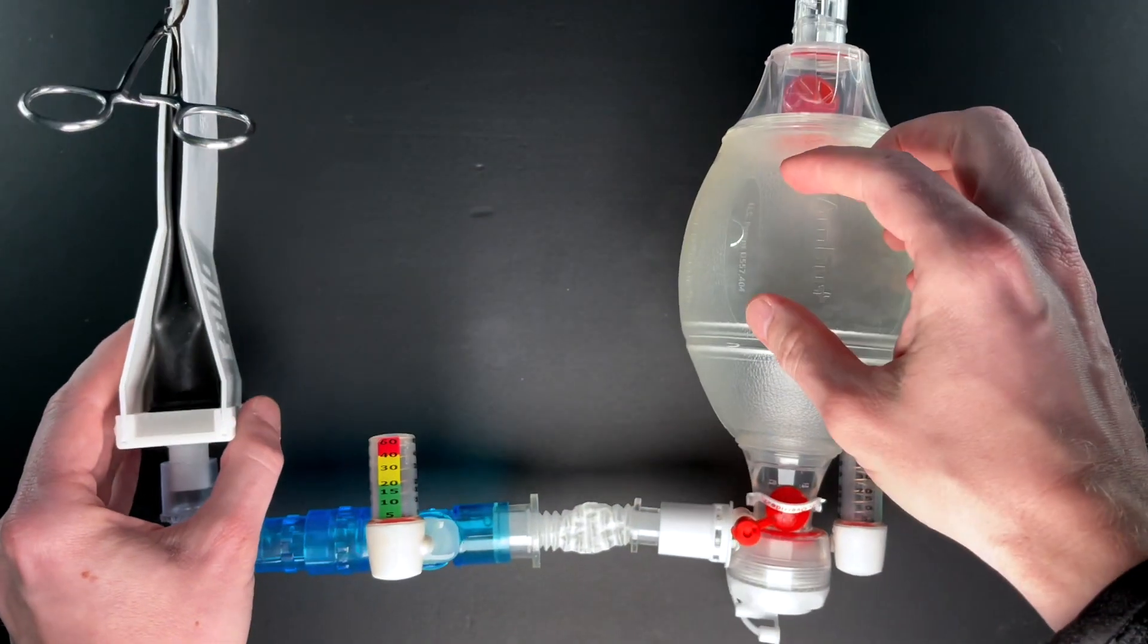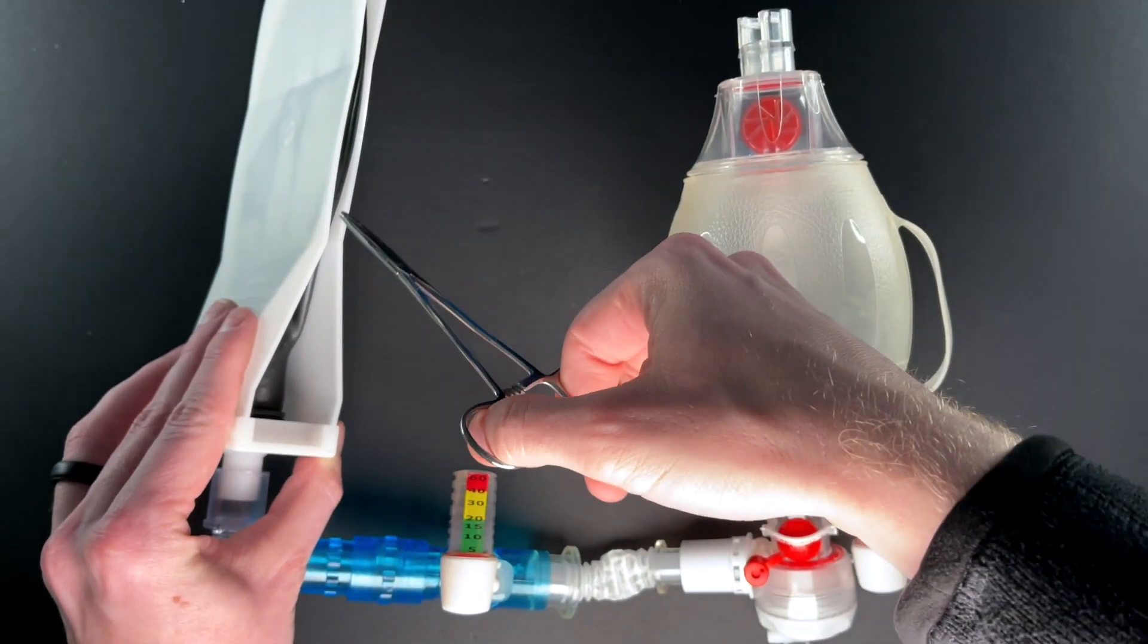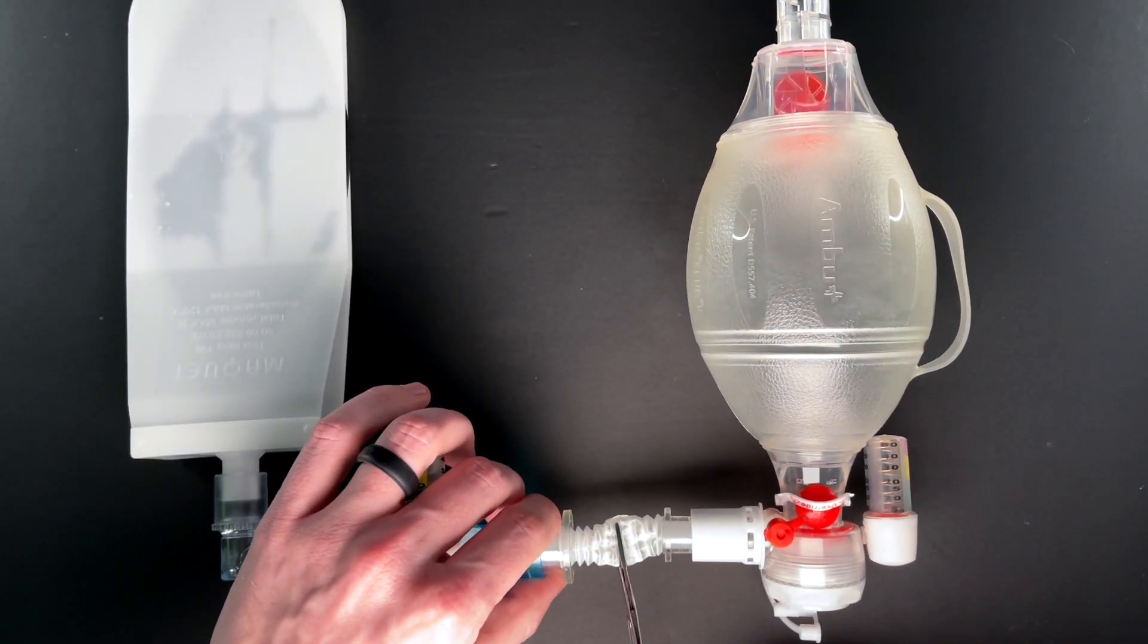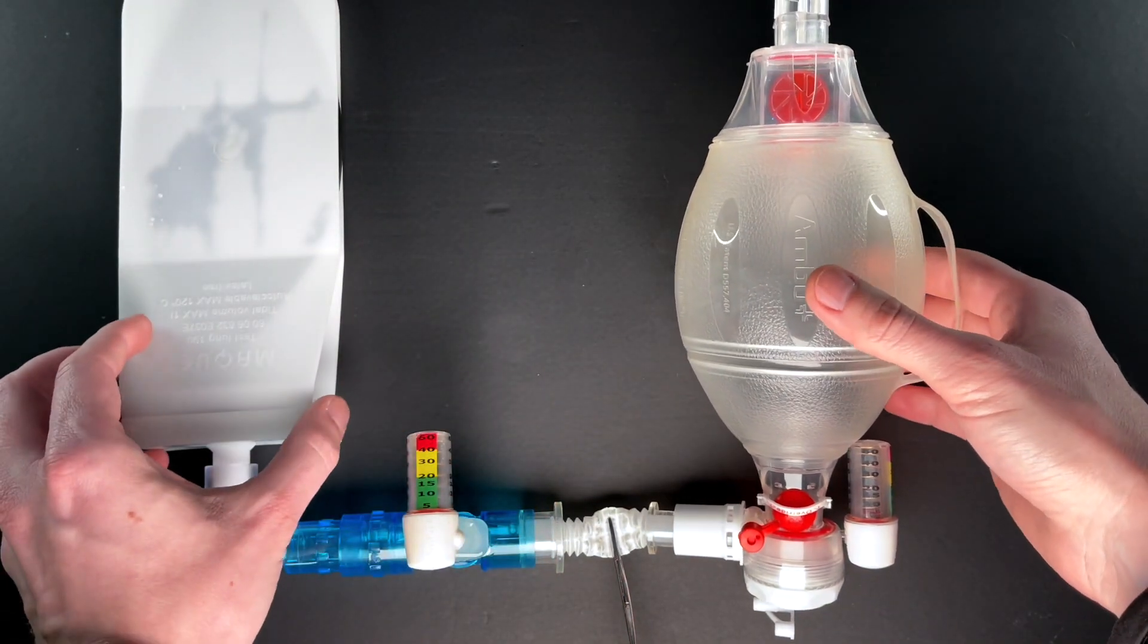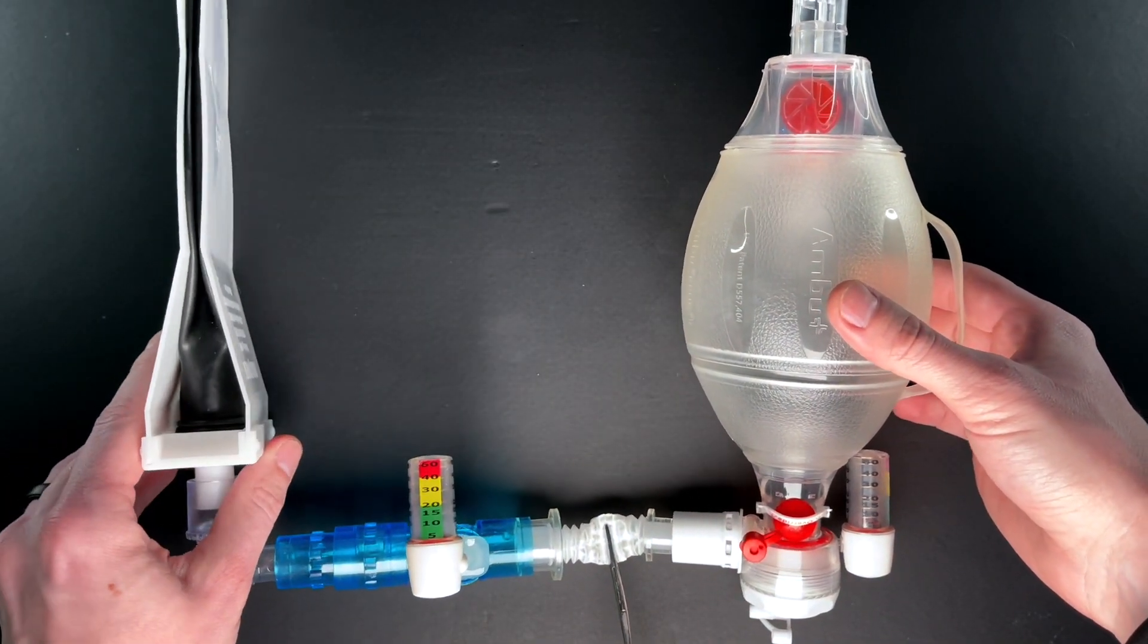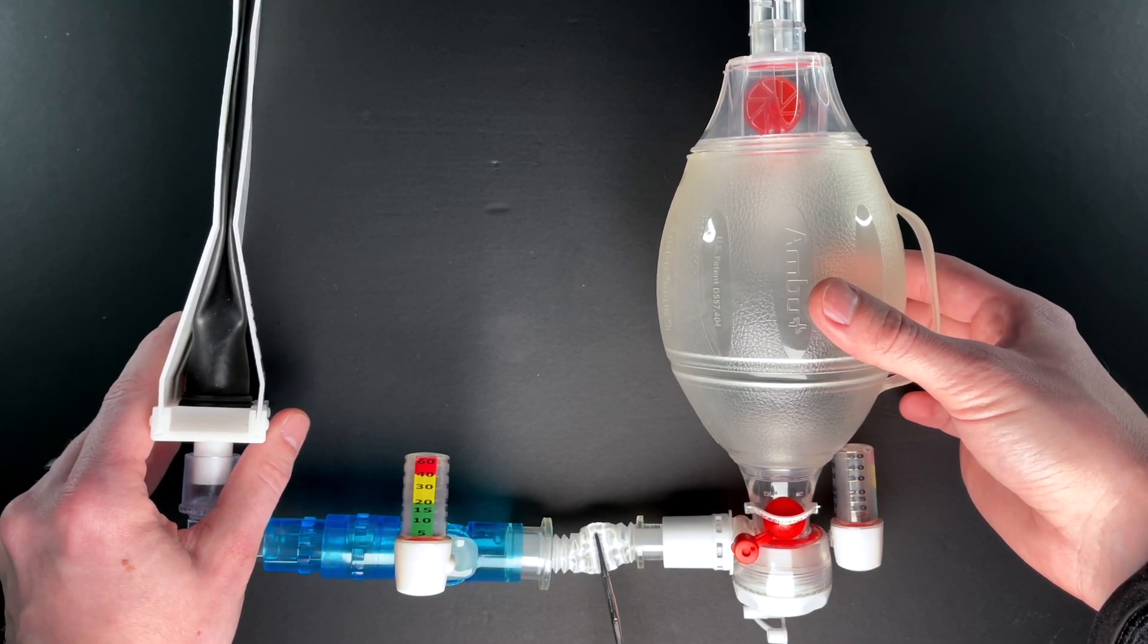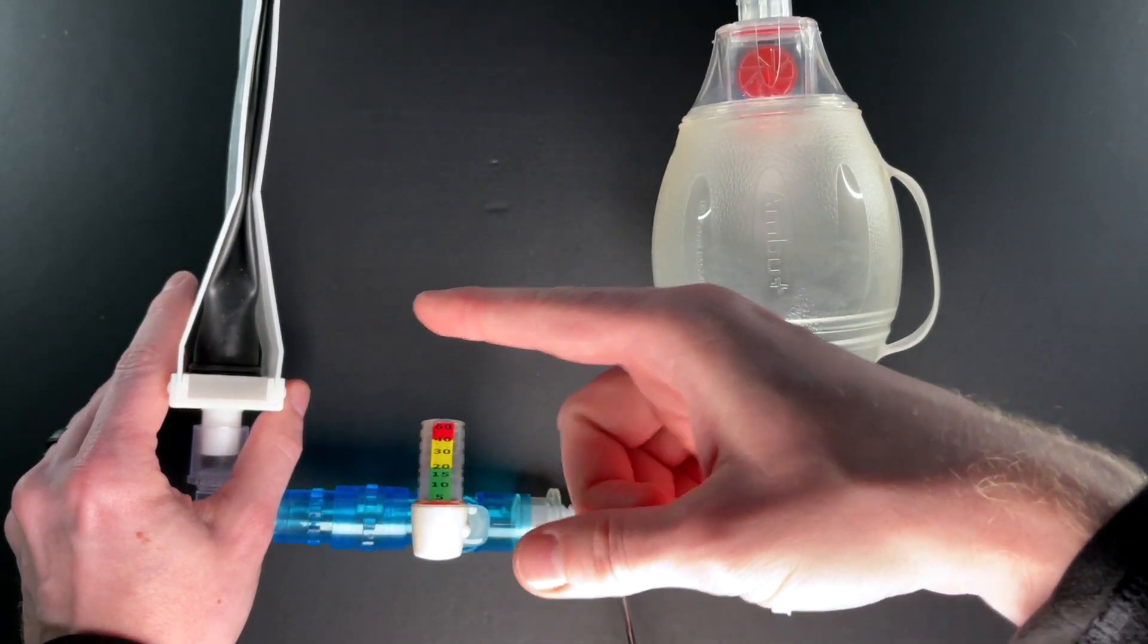On the other hand, I could take this off and say there's no problem down here. I could take the clamp and put it on this piece of flex right here, and that would simulate some type of increased airway resistance. An example would be asthma or even croup, because croup is airway resistance somewhere between the lungs and the upper airway.